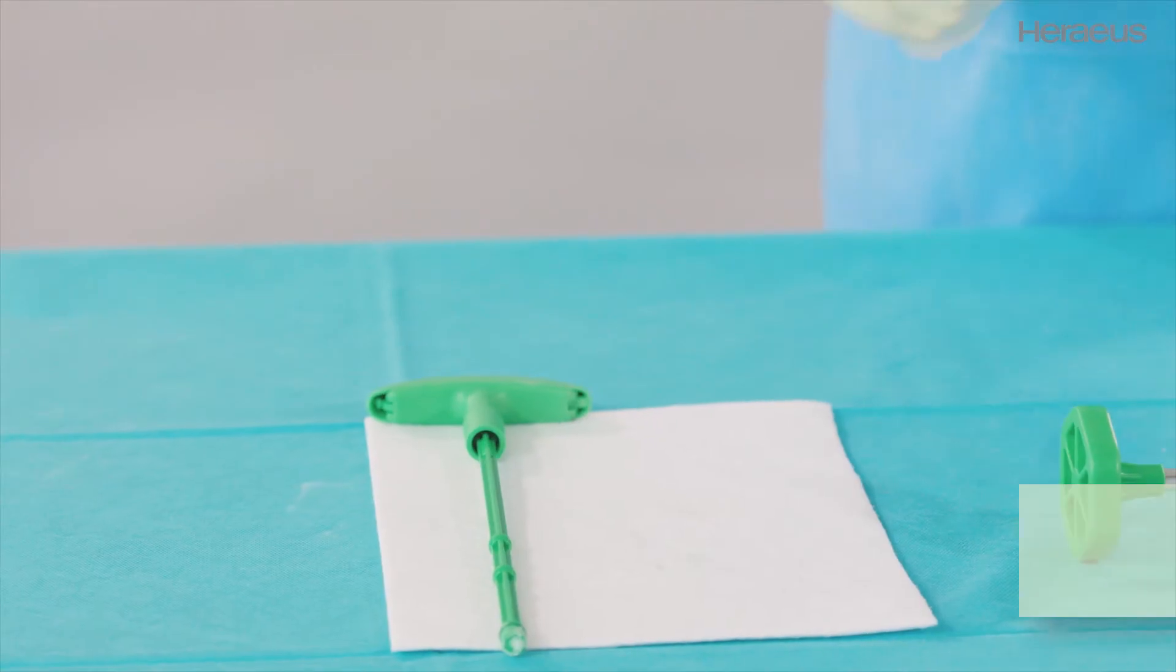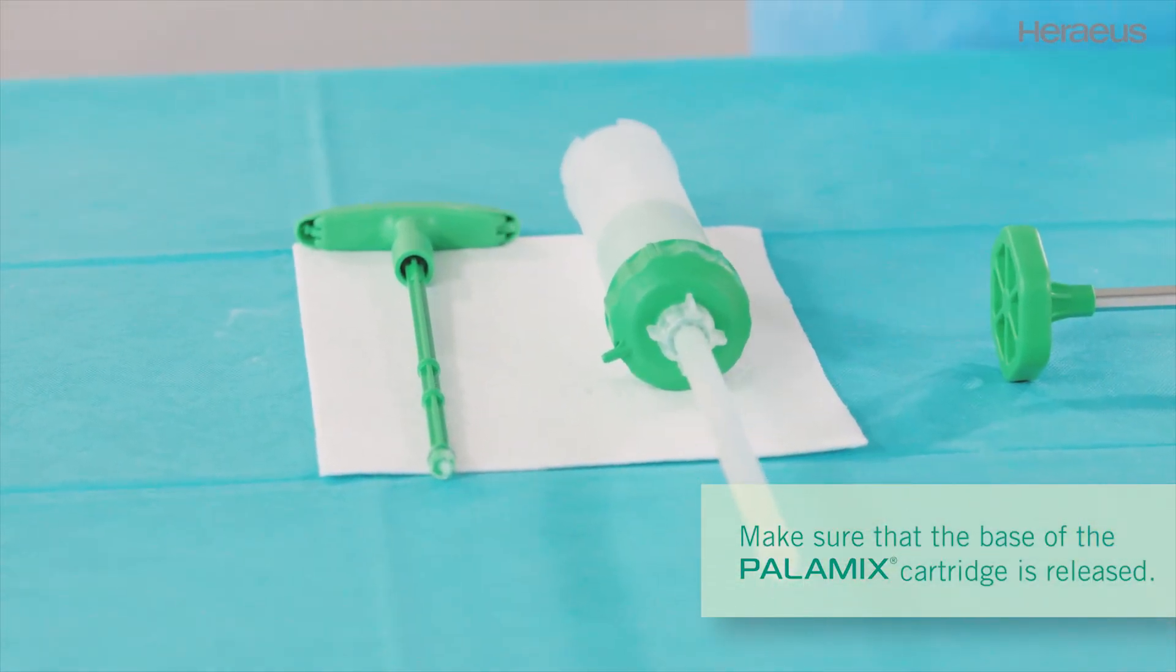Mix the bone cement with the Palamix system and place the cartridge on the sterile table.